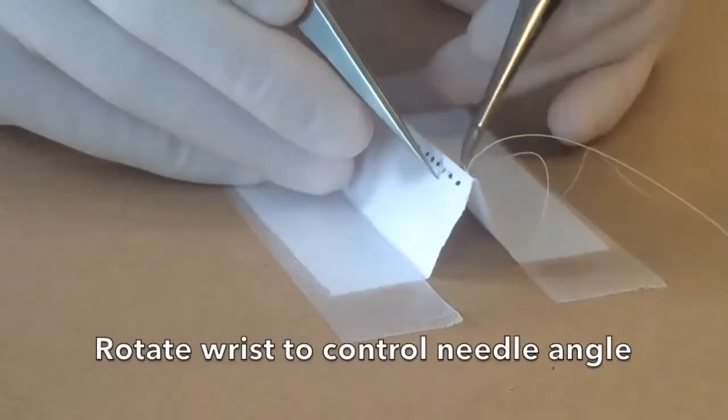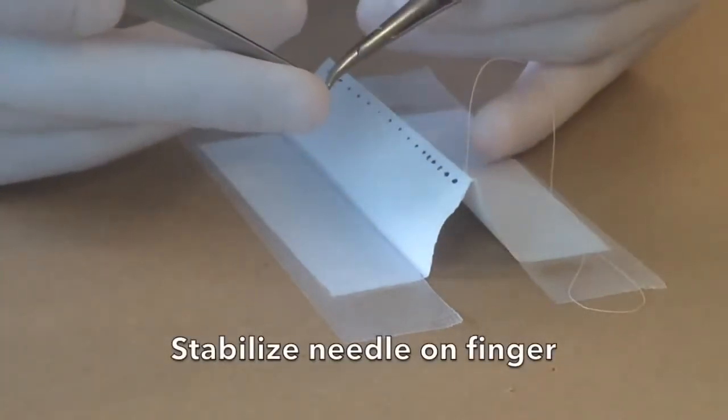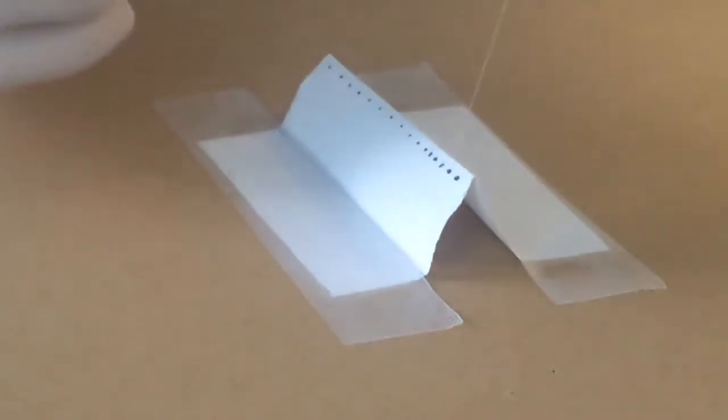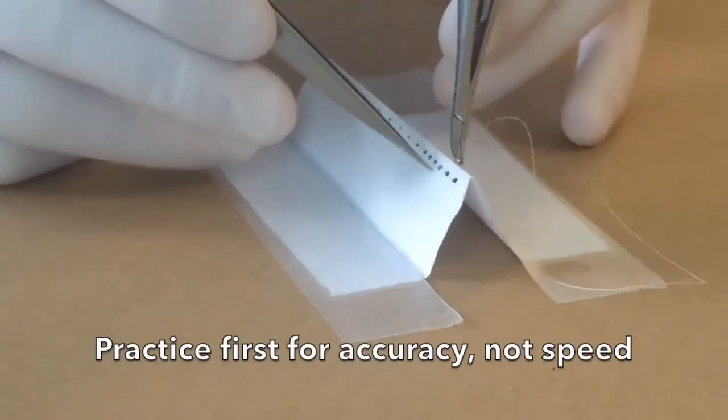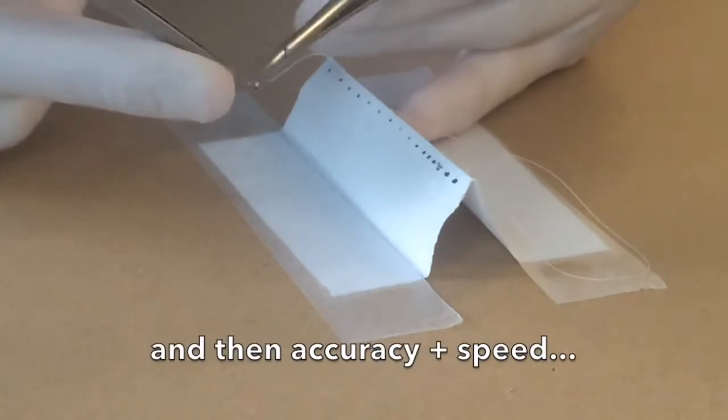It is important to rotate the wrist to control needle angle and to stabilize the needle on a finger before reloading. It is also important to practice first for accuracy, not speed, and then accuracy plus speed.